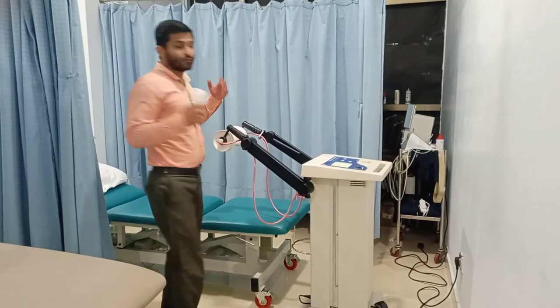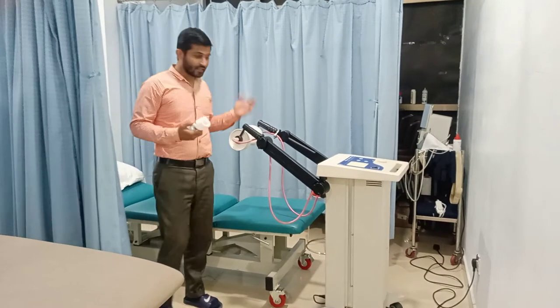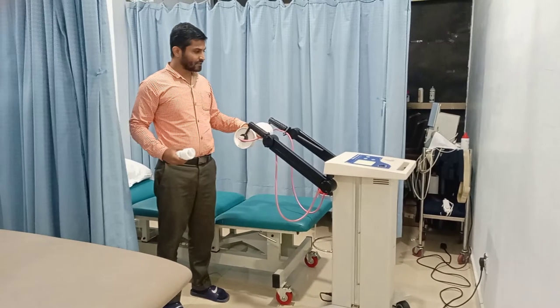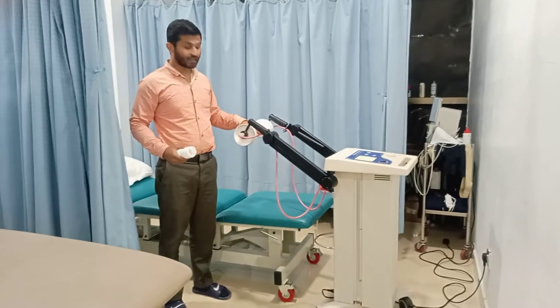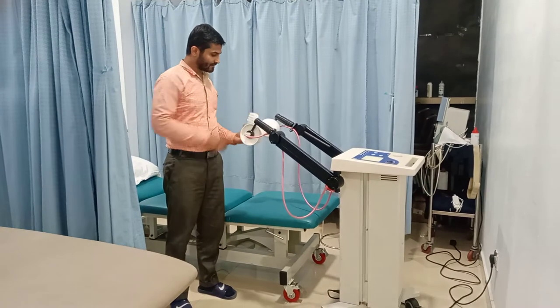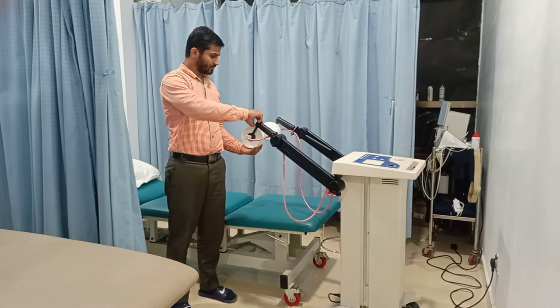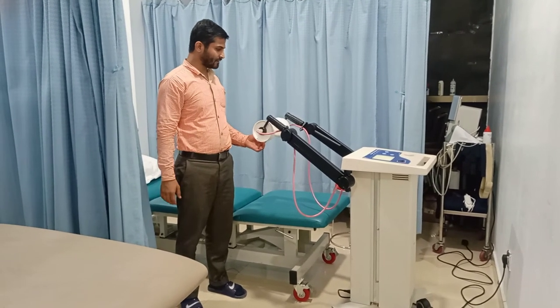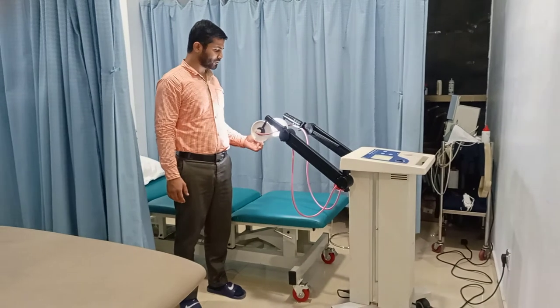Please make sure that no electrical equipment is near the machine. Now you can see, I can place my hand and I can feel the heat inside. But if I place this inside these electrodes, it is going to glow.